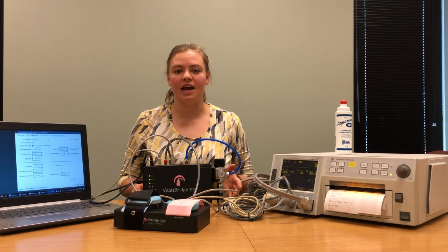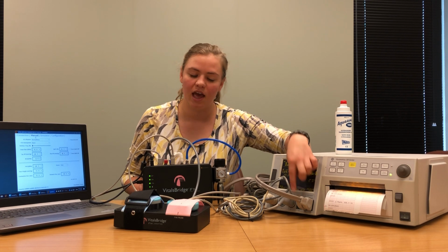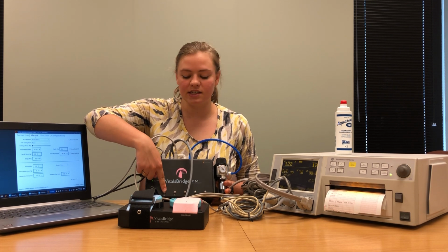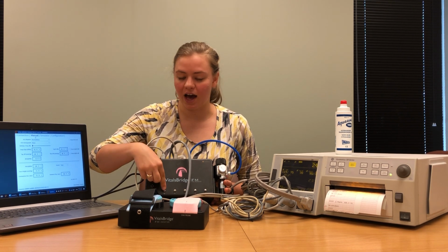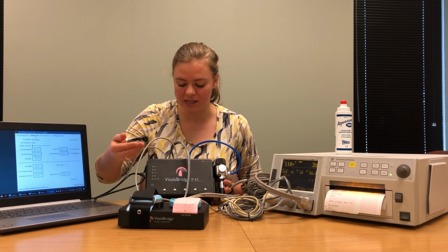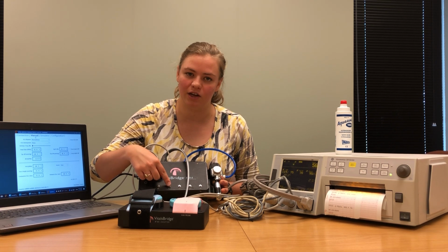The last thing that you can connect to your VitalsBridge is an ECG cable. I'm not going to connect one today, but if you would like to connect it, plug the end that plugs into the patient monitor where it says ECG, and then connect the ECG leads to the buttons on the bottom of your VitalsBridge. The ECG leads should be colored or have a small label with 2 letters. Match the ECG lead via color or lettering label to the buttons on the VitalsBridge. For example, you would connect the green lead or the green that said RL to this button here that has a green stripe and the letters RL underneath it.